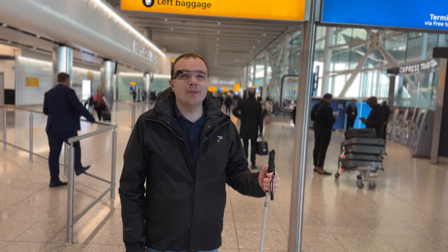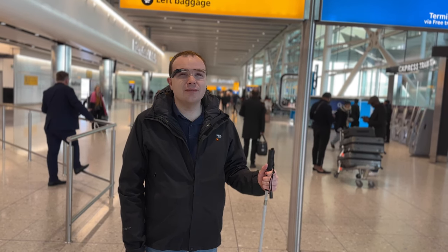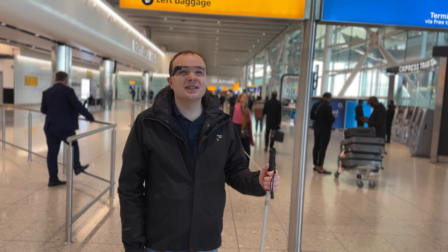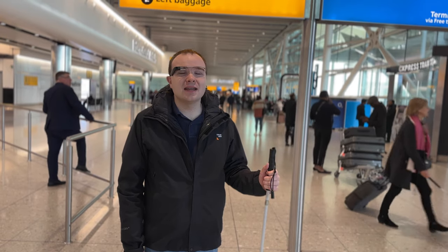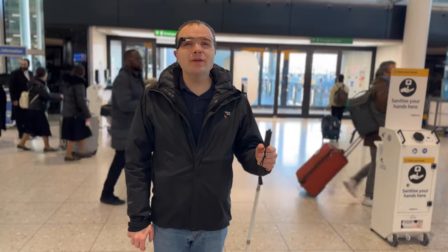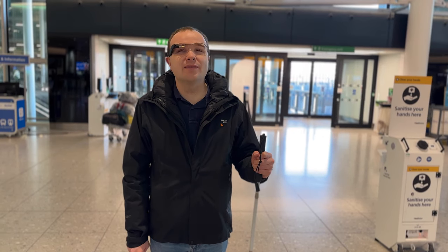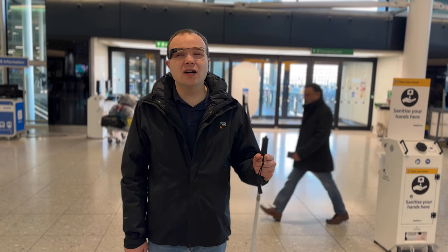And with that, it's about time to land. Welcome to London Heathrow Terminal — we've made it to London Heathrow Airport. But why bring the Envision glasses to Heathrow? With four separate terminals and an average of 80 million passengers in 2018, it's easy to see that this is a pretty complex environment. So to help give you a feel for how the Envision glasses perform, we're going to take a walk directly out of the doors, then walk straight ahead over the footpath reading signage as we go, until we get to the lifts which will appear on our right-hand side. The Envision glasses will try and read out the content they come across in instant text offline mode.